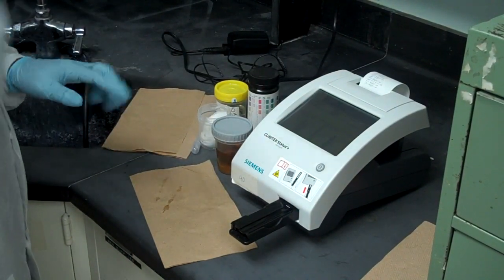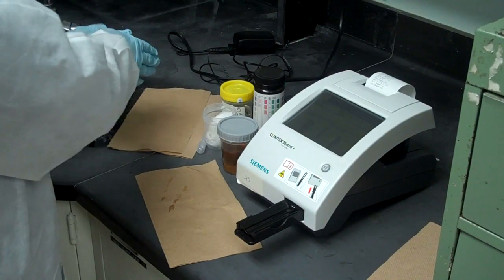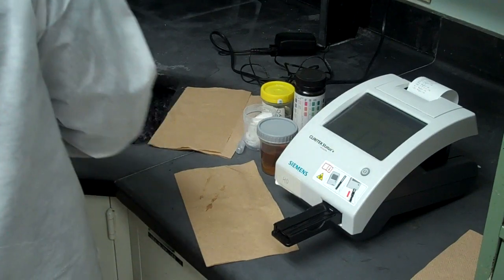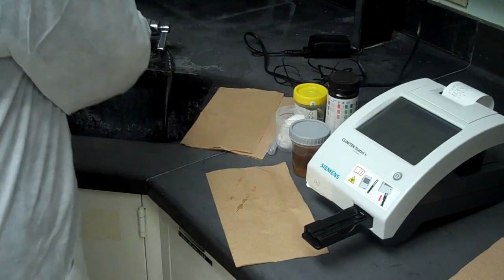Okay. So now we click on done. Now you take off your gloves. Put in a biohazard bag. And you wash your hands.